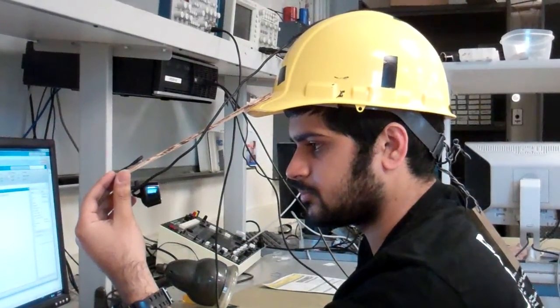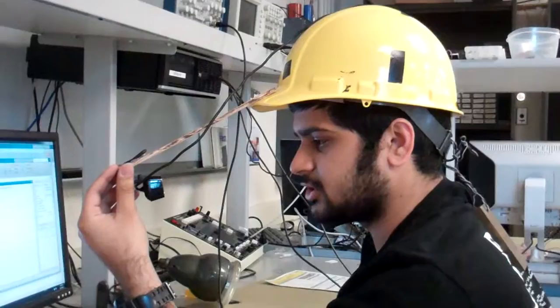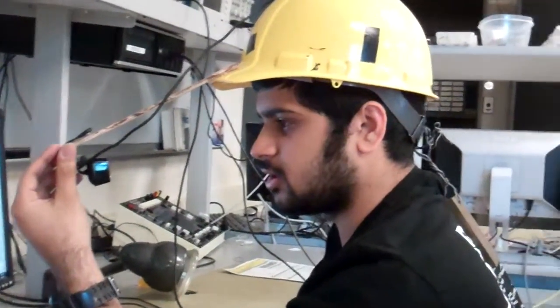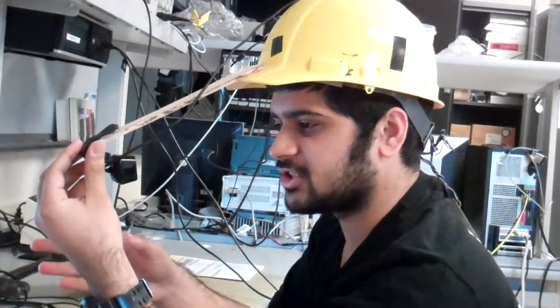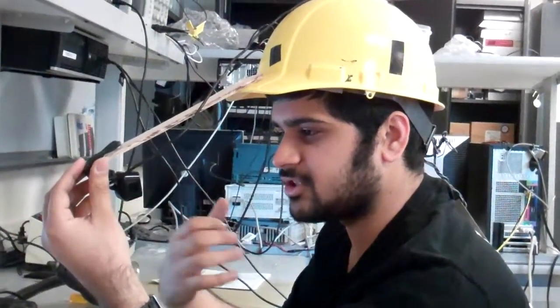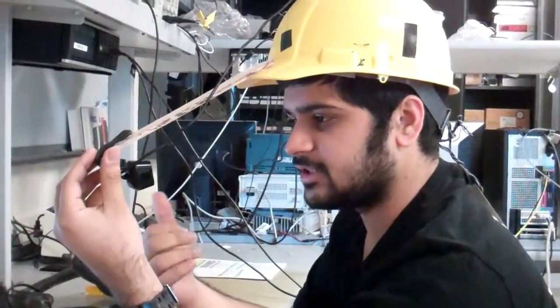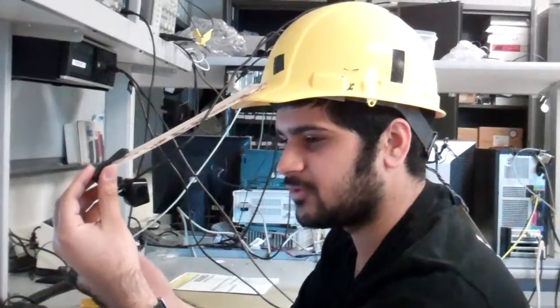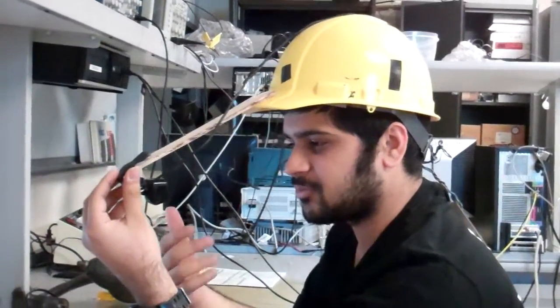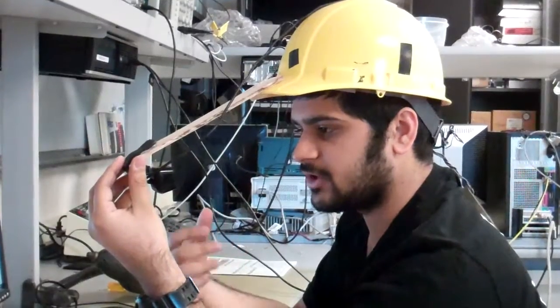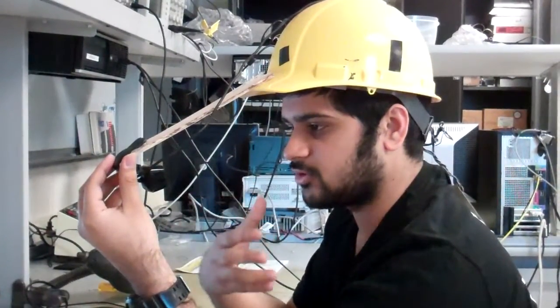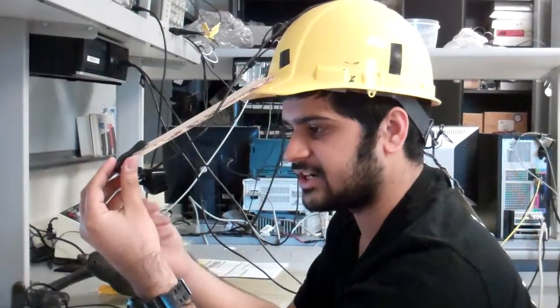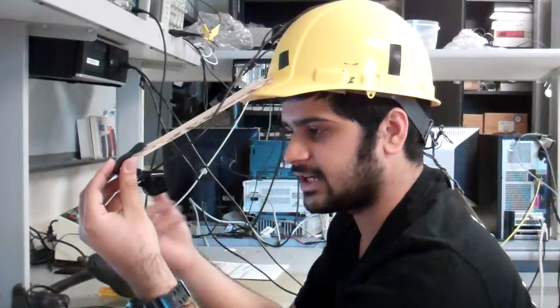So you're building a gaze-controlled robot. Yeah. So our project is basically a gaze-controlled robot for quadriplegic patients. The idea behind the project is that we want quadriplegic patients to have the ability to move in the way they want to without anybody's help. How this project works is there's a wheelchair on which the camera is mounted. On the basis of where the person looks, the wheelchair will move accordingly in that direction. I'll give you a small demo and then I'll talk more about it.